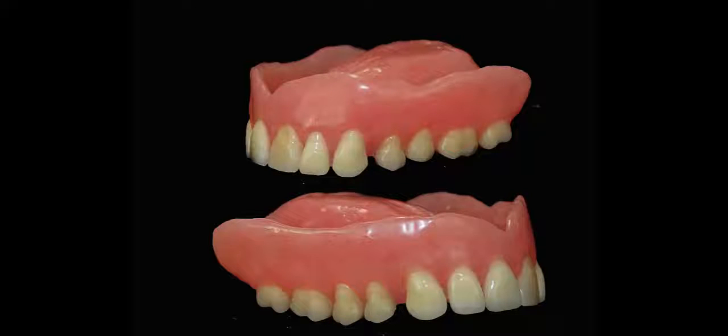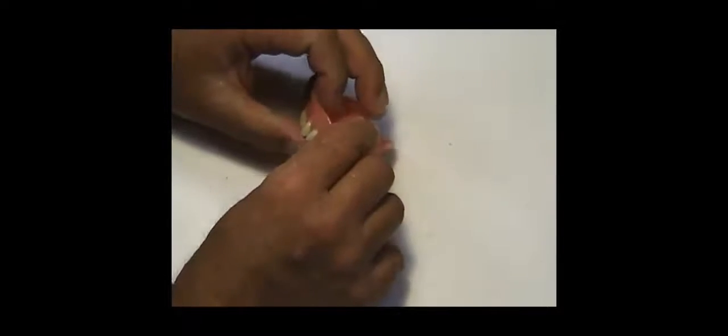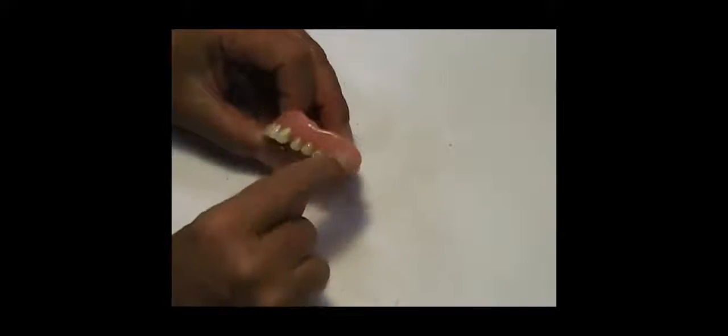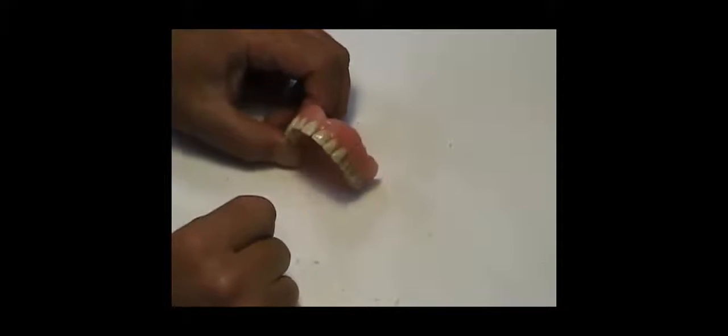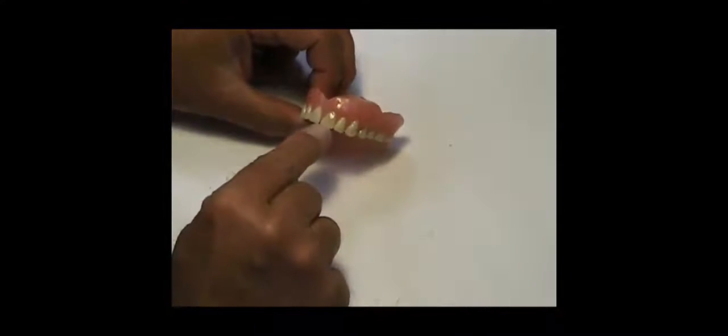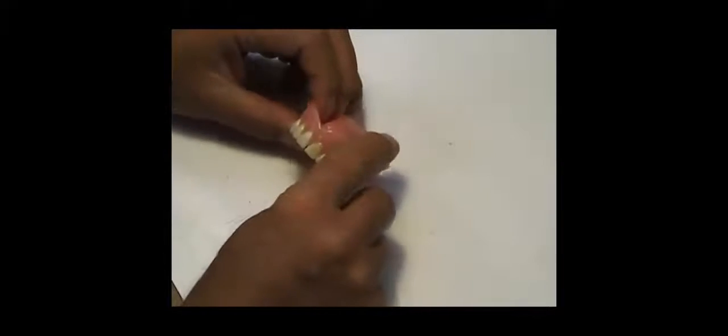I had a couple people ask why I didn't festoon this and make it look all fancy. As I alluded to before, this patient wanted this denture fixed because they like this denture. I have to make sure they get that denture back pretty much the way it came, with all the tooth positions, all the replacements, and the smooth shiny character of the base.